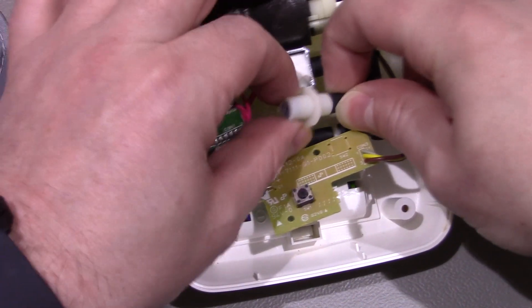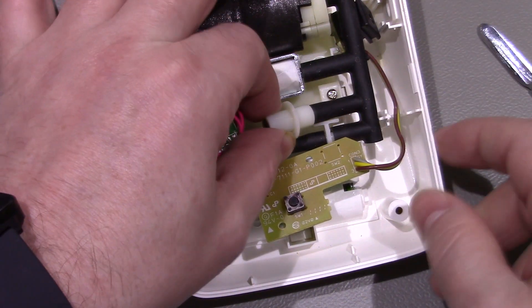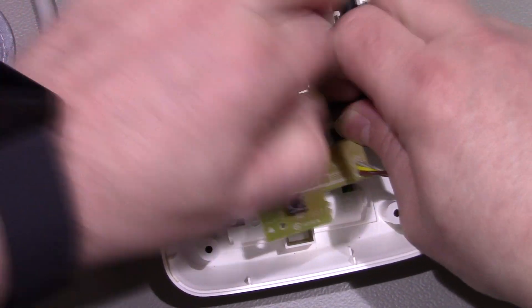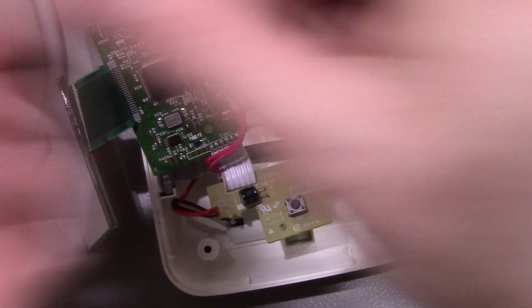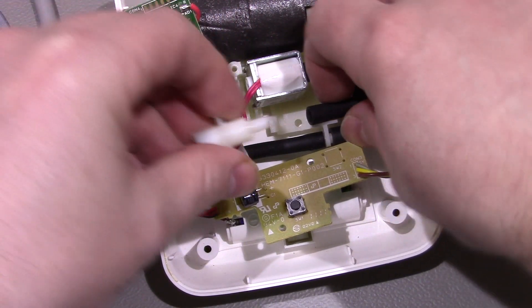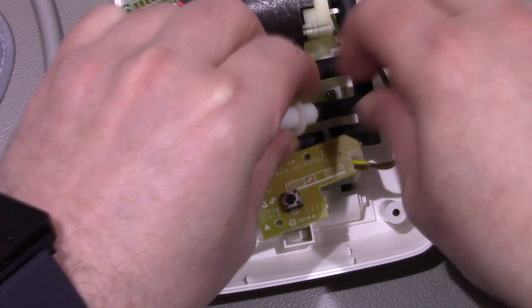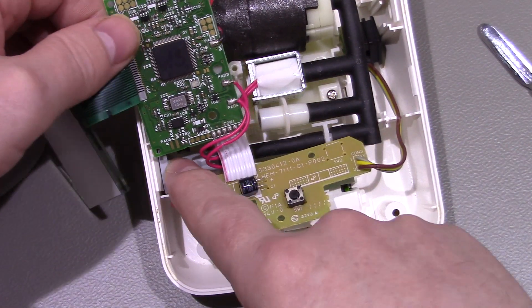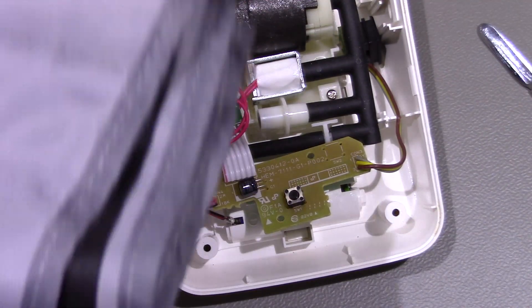I've got this little bit here - not quite sure what it does because you can't actually get any air through it. I tried blowing from the other end so it's not any kind of inlet either - just kind of a bit pointless really. Then obviously that goes through to your outputs to your cuff.